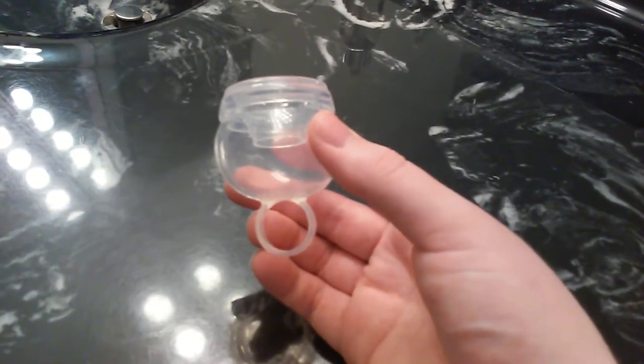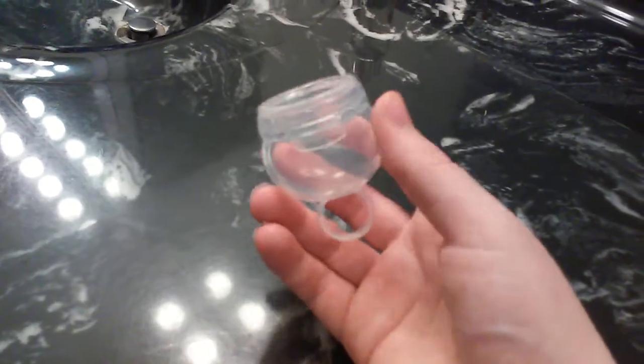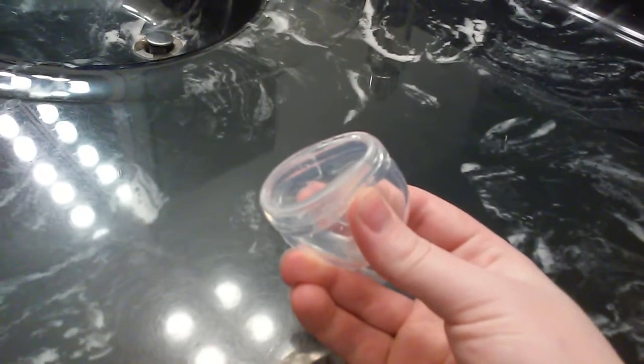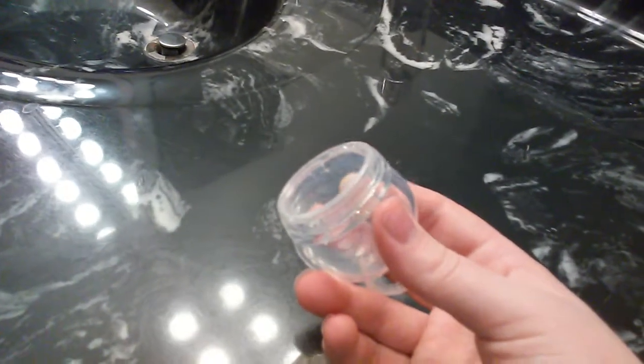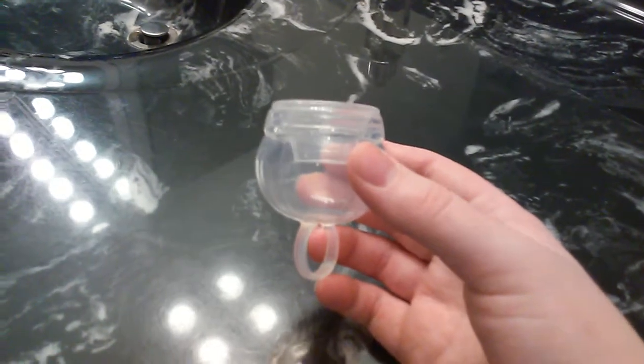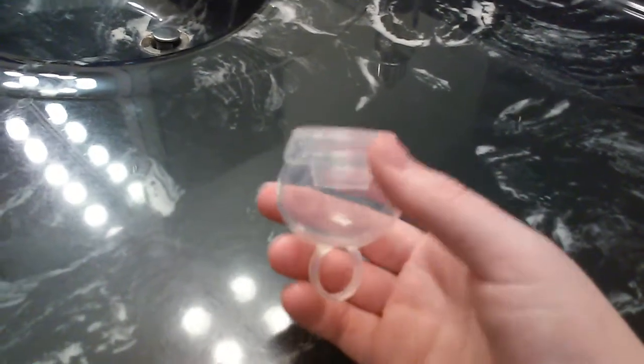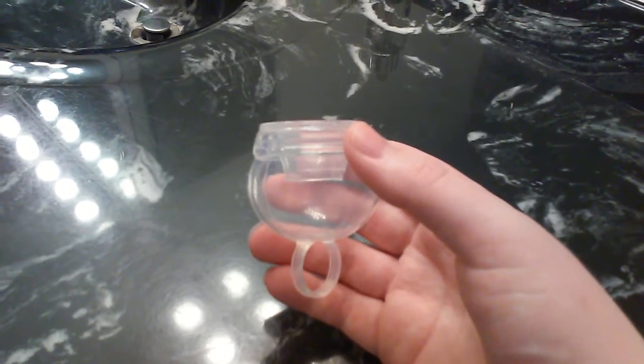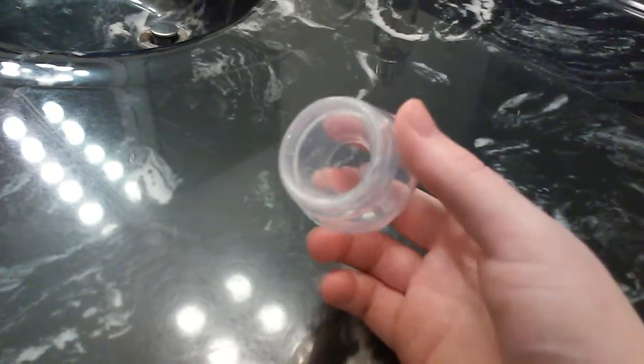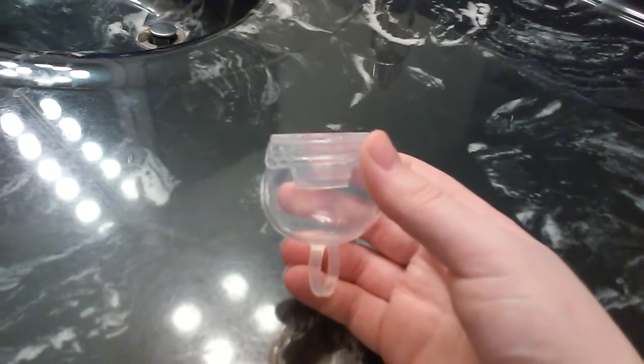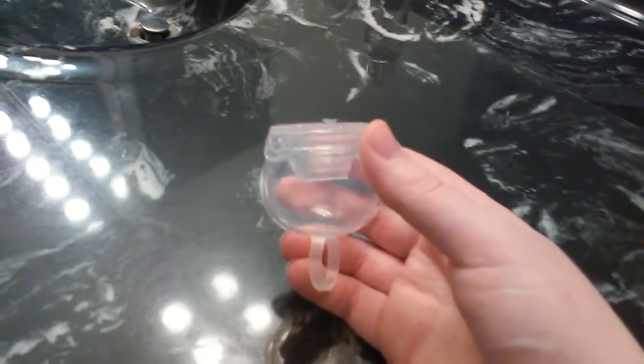Now what is my opinion of this cup? From personal experience this is definitely not my favorite cup. I found it sort of uncomfortable to use and I think it's because of the bulbous design. When it was inserted, when it was partially collapsed, it was pretty comfortable. But as the day went on, I noticed it opened all the way. As it opened all the way, I became aware of feeling this cup. So I wasn't completely satisfied. I've used it from time to time, but it's definitely not one of my favorite menstrual cups. I would consider buying the teen version in the future, even though I'm not a teenager, to compare to this version as it's a smaller design altogether, thinking it might provide better comfort.